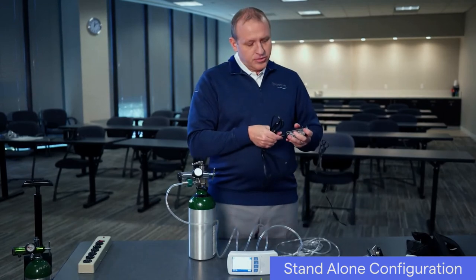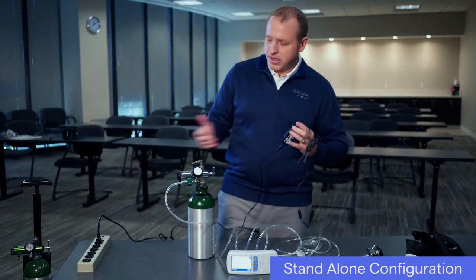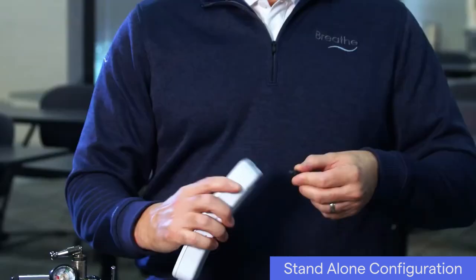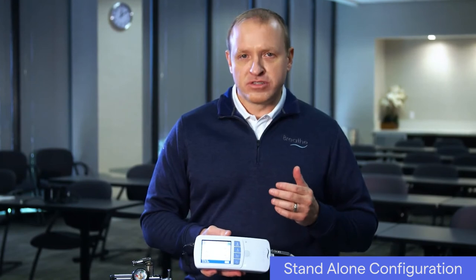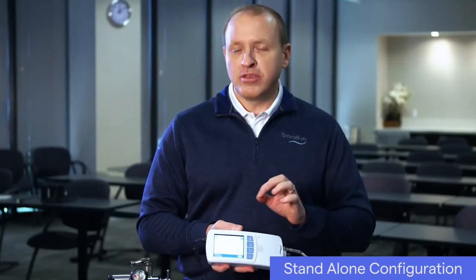To charge the ventilator, connect the AC power cord to the ventilator's battery charger, then connect the pronged end of the power cord to an AC power source — in other words, plug it into a wall outlet. The indicator light on the battery charger will turn red or green when connected to AC power. Place your thumb over the word 'up' on the connector and connect the cord on the battery charger to the battery charger connection on top of the ventilator. When the ventilator is powered on, you can check the battery icon on the touch screen to see that the ventilator is charging. There may be a slight delay before the indicator appears. The ventilator can be used while it is charging.